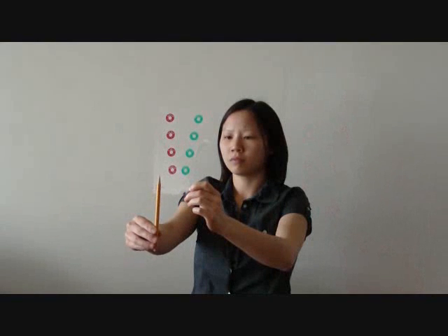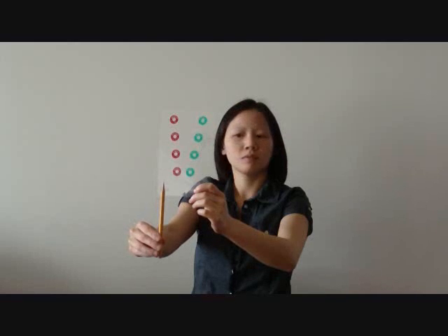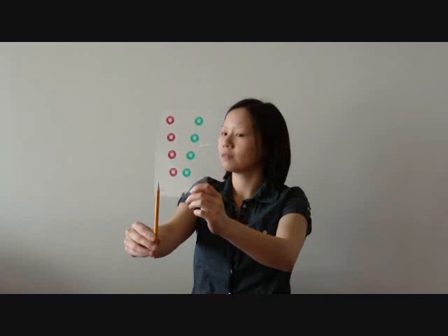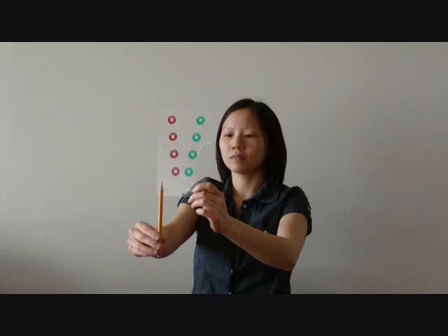If you are able to see the proper three circles and keep the letters clear, slowly turn your head to the left about an inch and then to the right about an inch while you keep the middle circle single. Do not tilt the card or your head.